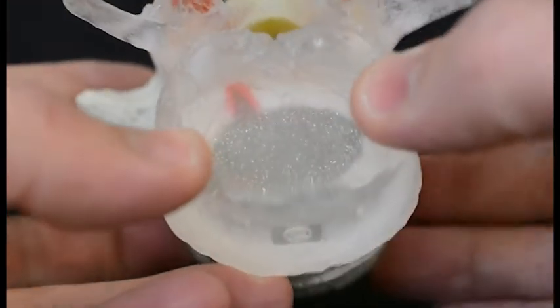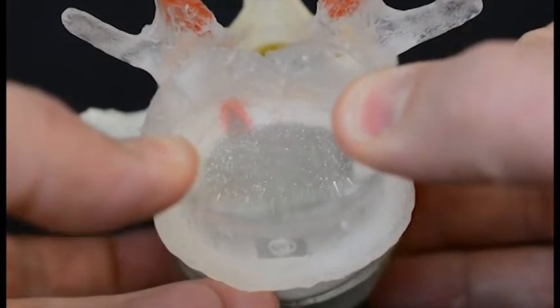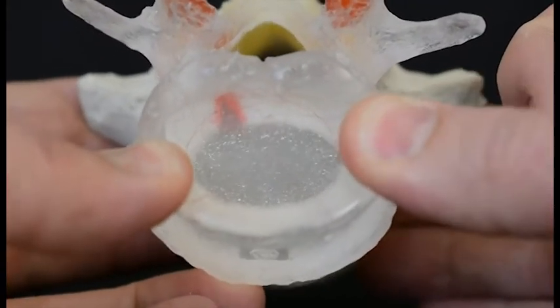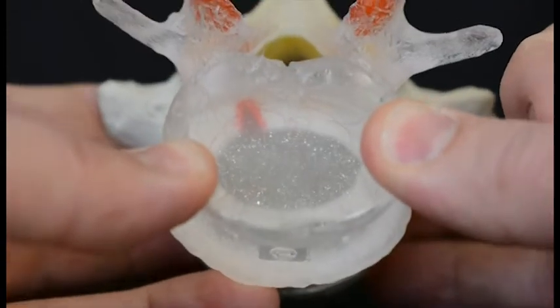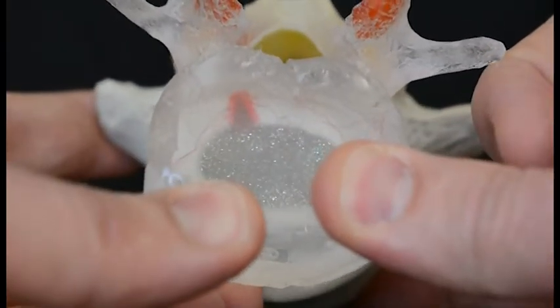From a top-down view, you can clearly see the reflective material within the nucleus pulposus and how it pushes posteriorly under flexion load.